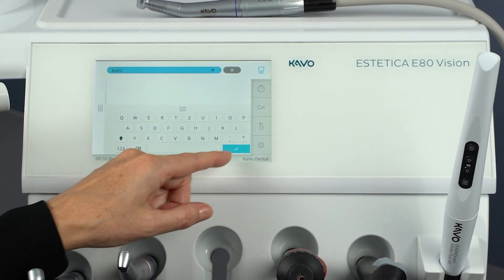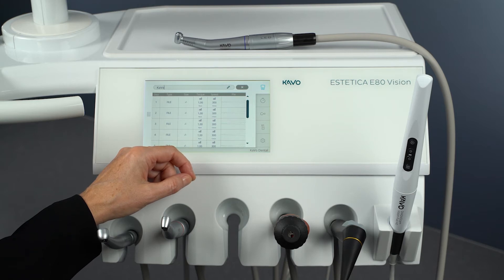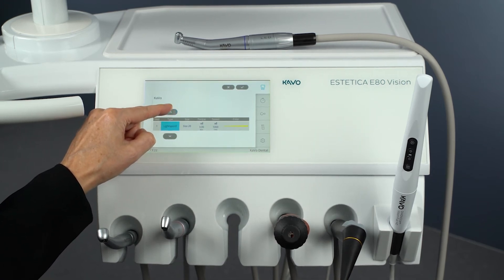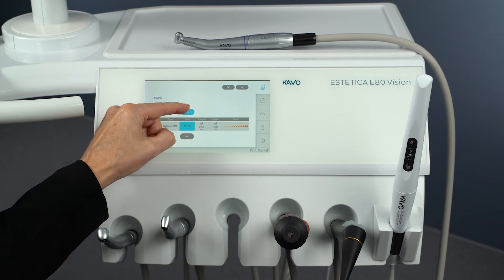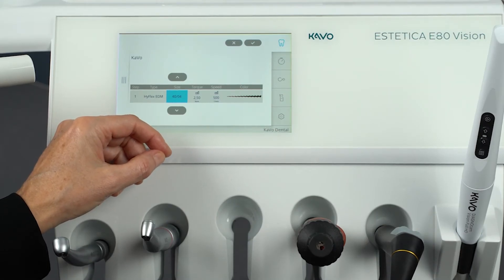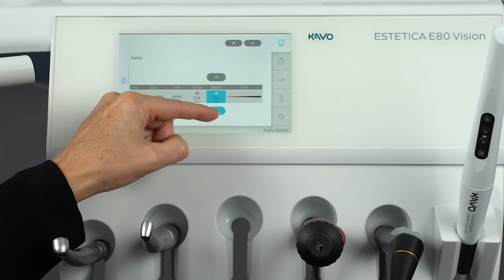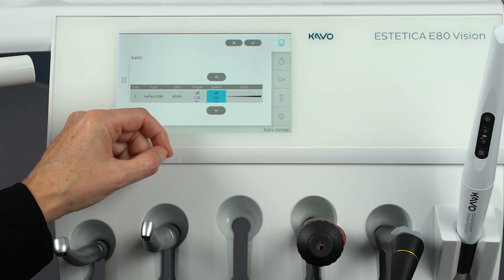Tap the Save button to save the profile name you have chosen. Now compose your treatment sequence in the file editor. Tap on the type column and use the arrow keys to select the desired file system — we choose HyFlex EDM as an example. Then tap on the size column and use the arrow keys to select the desired file geometry. When the file system and file geometry are selected, the torque, speed, and file color columns are automatically assigned. The data on the file systems and file geometries are stored in a file database.